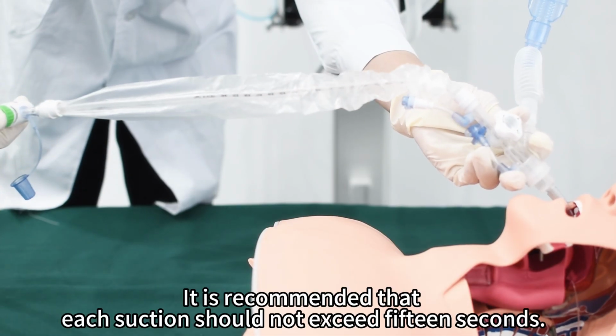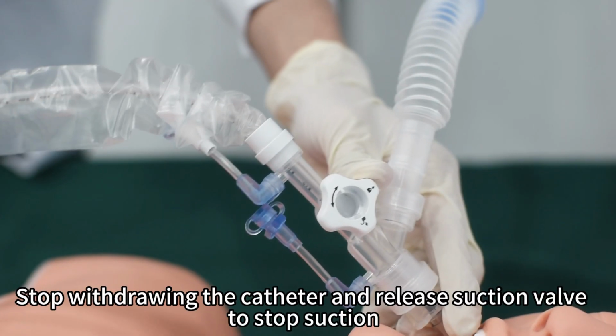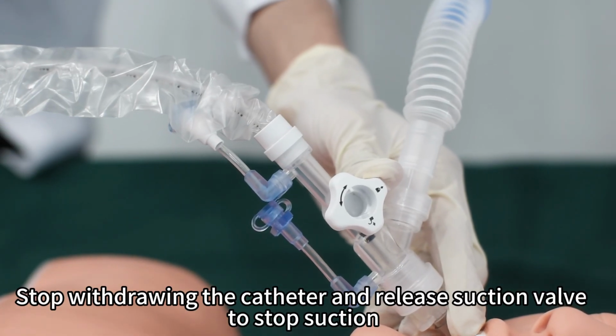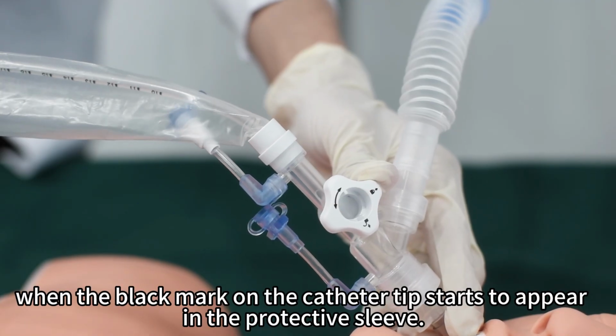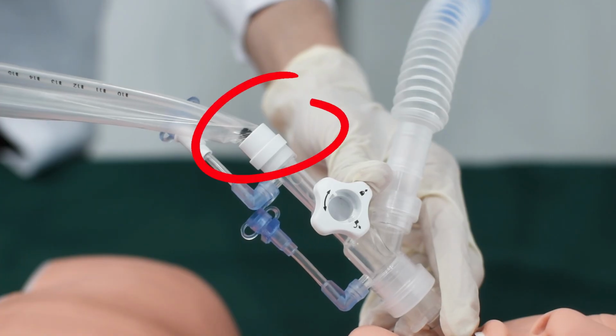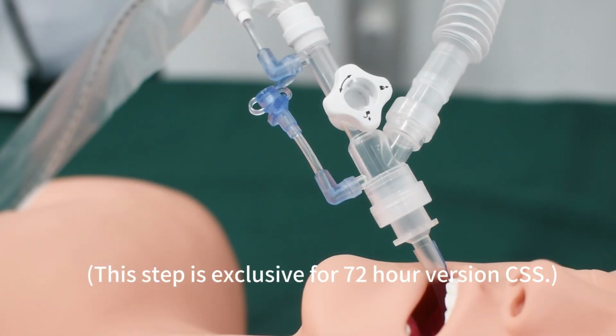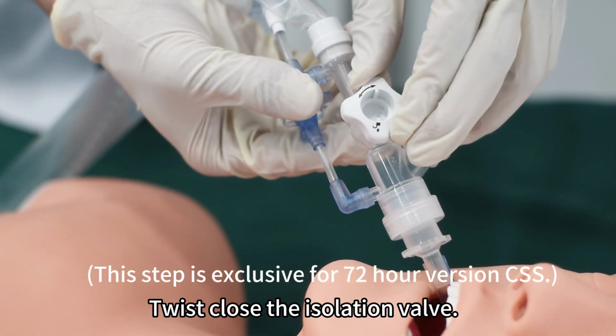It is recommended that each suction should not exceed 15 seconds. Stop withdrawing the catheter and release the suction valve to stop suction when the black mark on the catheter tip starts to appear in the protective sleeve. Twist to close the isolation valve.